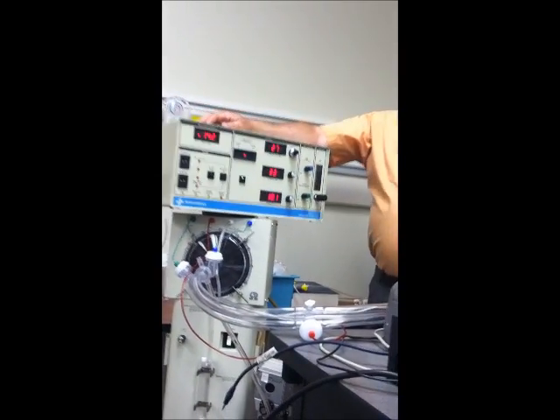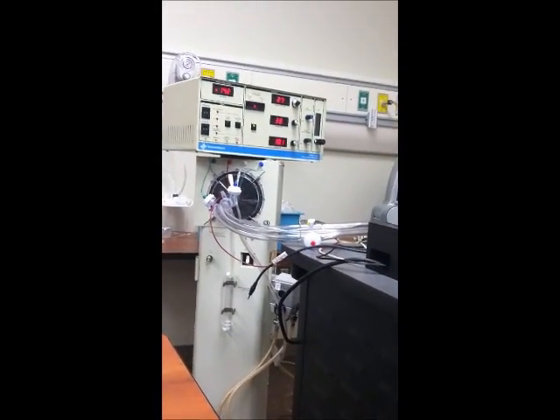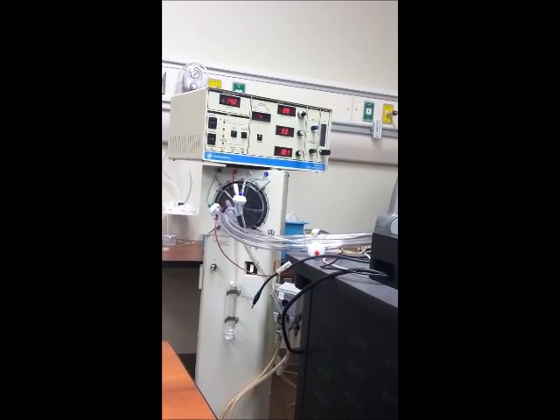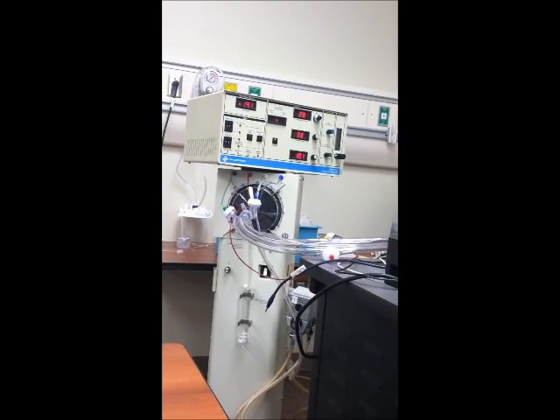As my finger gets more sore as we do this, I'll probably not change those alarms as much. It seems kind of silly that your finger would get sore with 20. That's not really 21st century technology. It's really early 1980s technology.